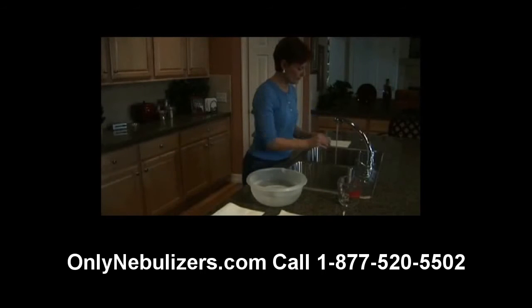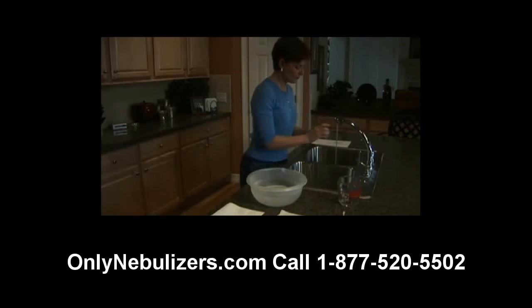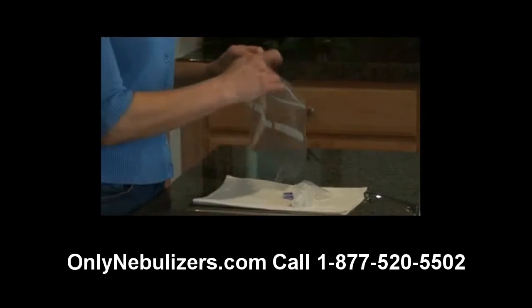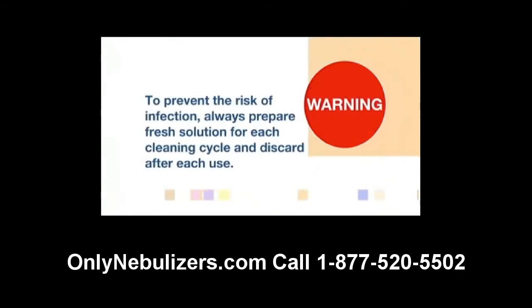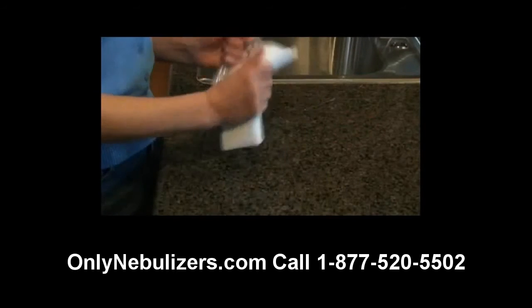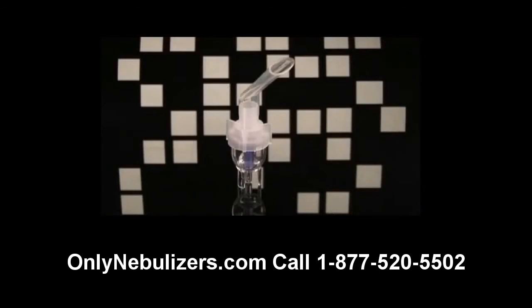With clean hands, remove the nebulizer parts from the disinfectant solution, rinse thoroughly under hot tap water, and allow to air dry on a clean paper towel. Store the parts in a sealable plastic storage bag. Always prepare fresh solution for each cleaning cycle and discard after each use. Keep the outer surface of the tubing free of dust and grime by wiping regularly. With proper care, your disposable nebulizer will last at least 15 days and possibly longer depending on usage.